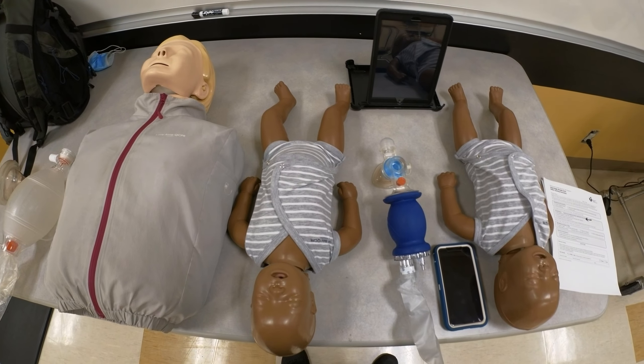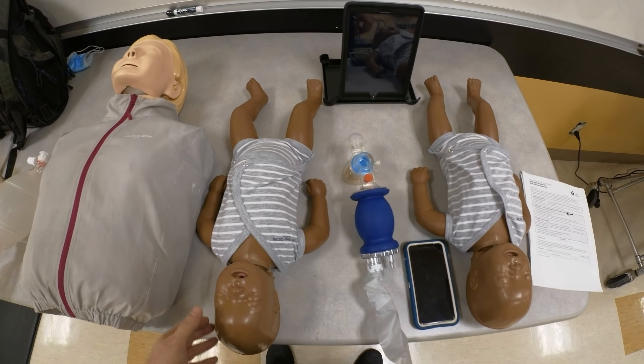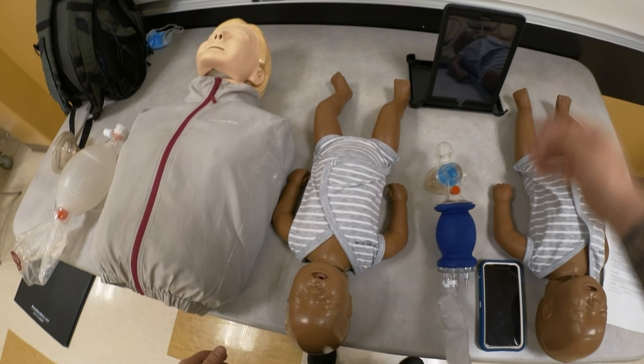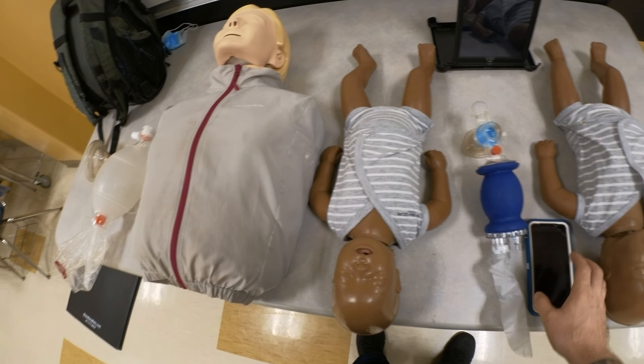Hello, my name is Nikolai Yusupov, and in this video I'd like to show you how to pair your QCPR mannequins with either an iPad or your phone.